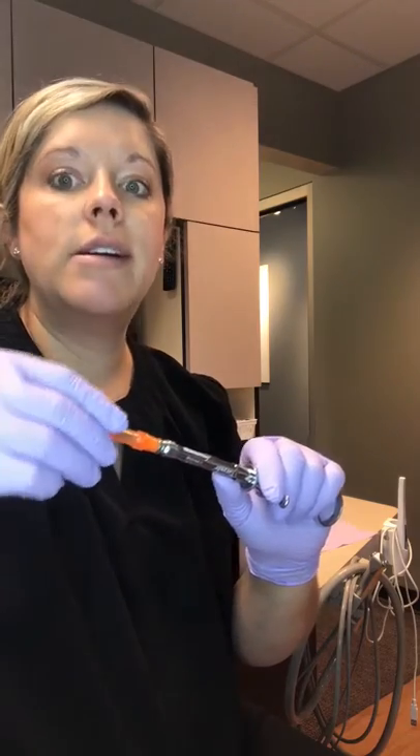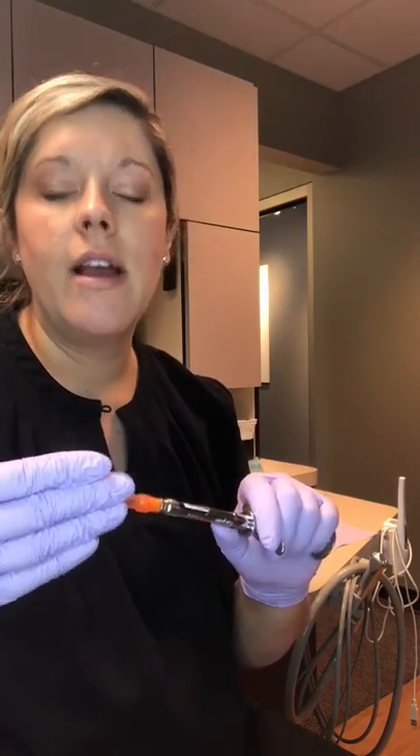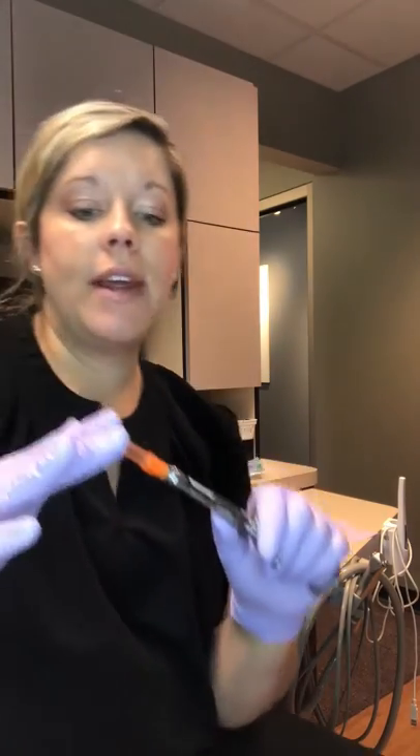The reason is, if you're pulling as you're unscrewing, the cap can fly off. You're going to be more likely to get a needle stick. So I always press down, almost as if you're screwing it on, but I unscrew it as I'm pressing down. That is to ensure the cap is staying on the syringe and you're not at risk of it flying off.